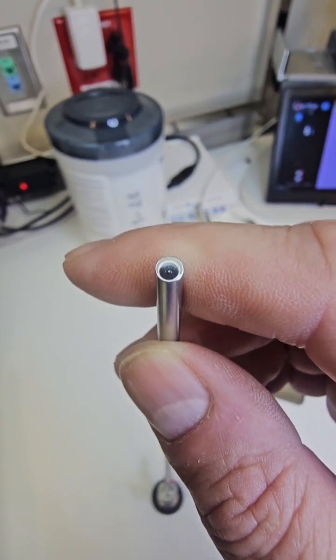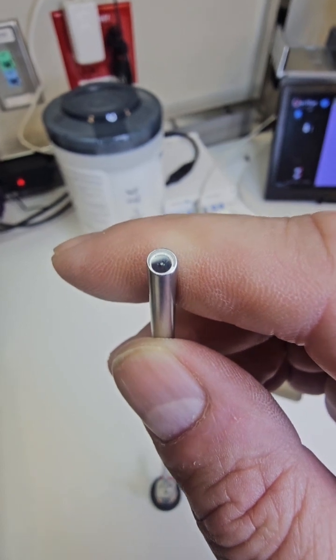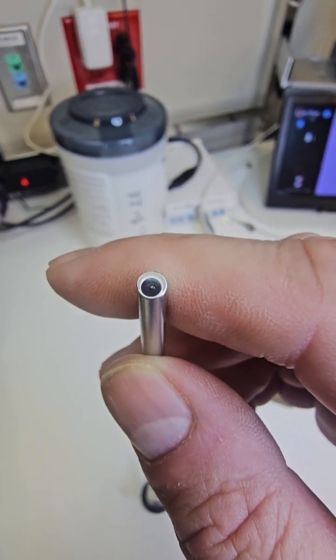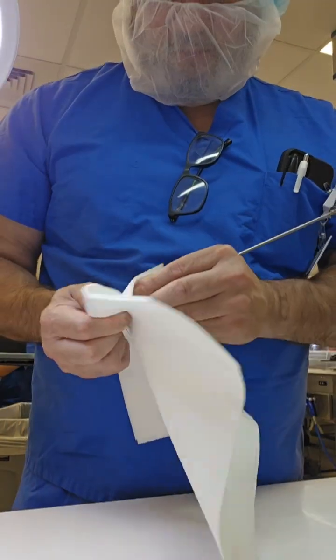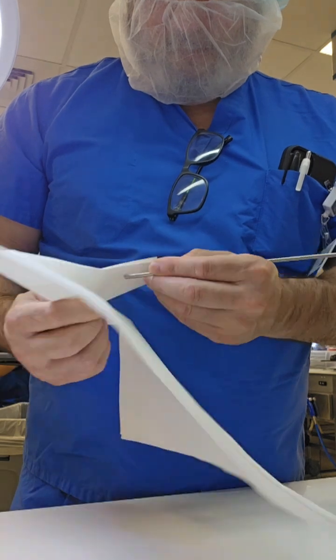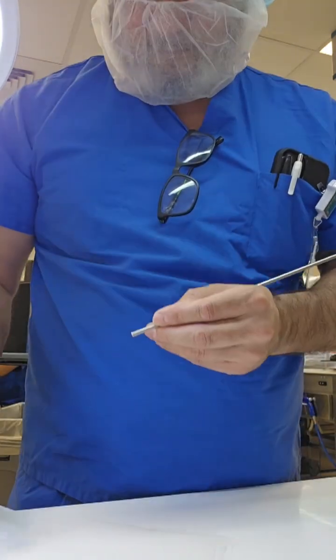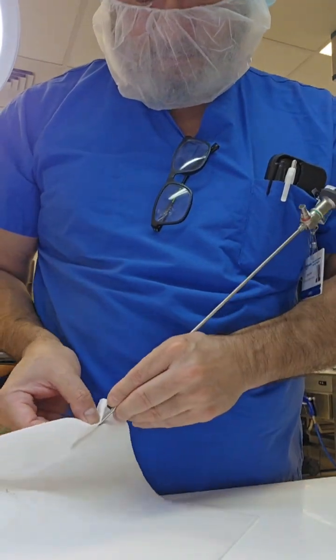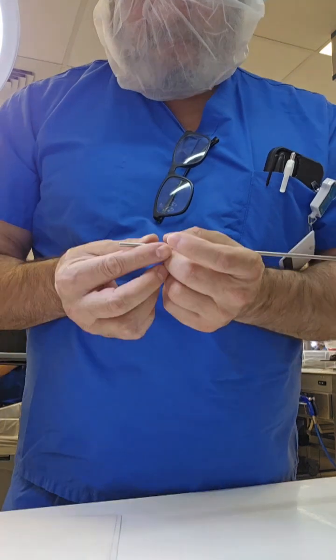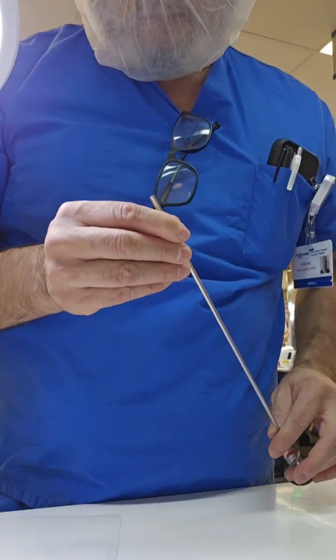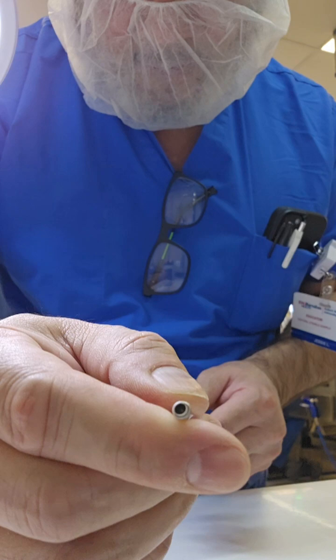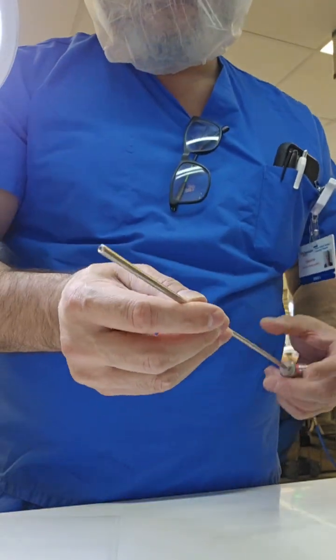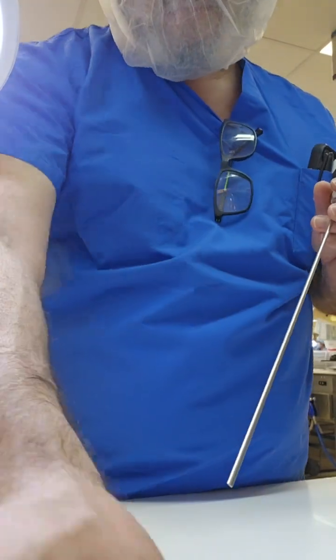What you did see was the glaze from my fingertips, so we're going to polish this one more time here to remove my little oily paws off the lens. Then we're going to wipe off again, the proper way - you don't want to do it with your fingers because you're going to put oils back onto that lens. We've cleared off the glaze here, so it looks good visually by the naked eye. This looks really good, but let's see what this image looks like.